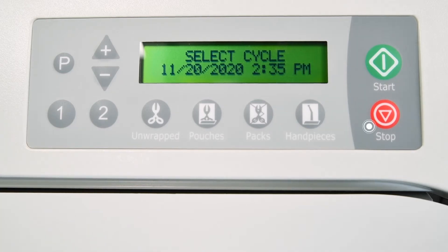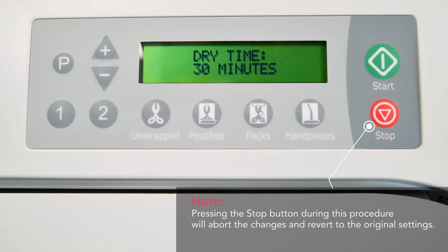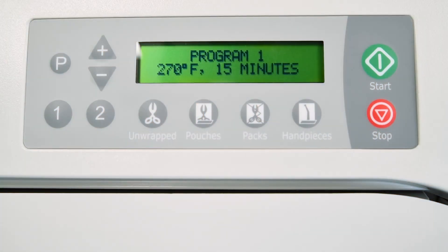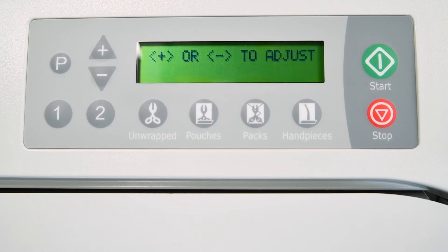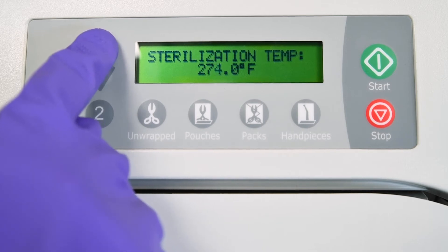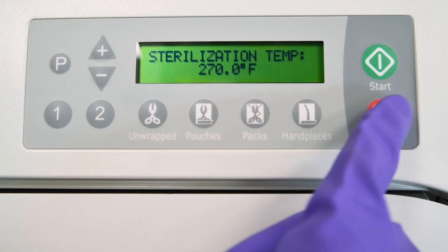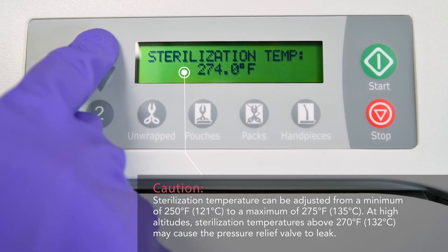Then follow the prompts on the unit display to set the desired sterilizing temperature, sterilizing time, vent type, and amount of drying time. For this example, we'll use program button 1. The display will show the currently stored program and all cycle parameters. To reprogram, start the process to create a custom program by pressing P. The display will show sterilization temp and the current value. Press plus or minus to adjust the temperature in 1 degree increments. Once the desired temperature is reached, press P to set the temperature and continue to program the custom cycle. Otherwise, press stop to cancel the programming. Any temperature from 250 degrees Fahrenheit up to 275 degrees Fahrenheit can be selected.